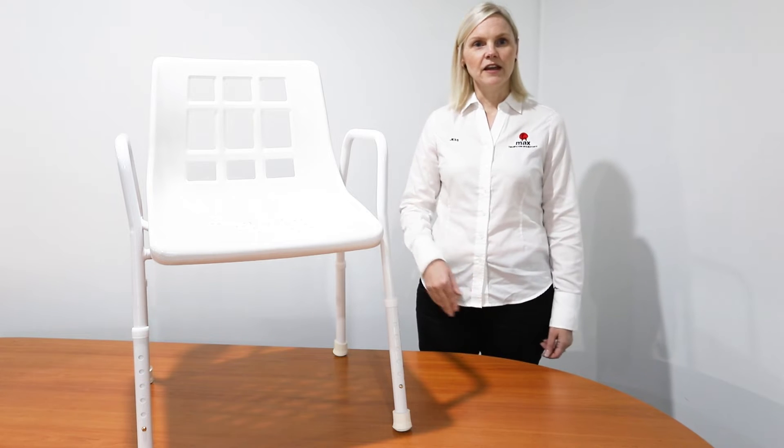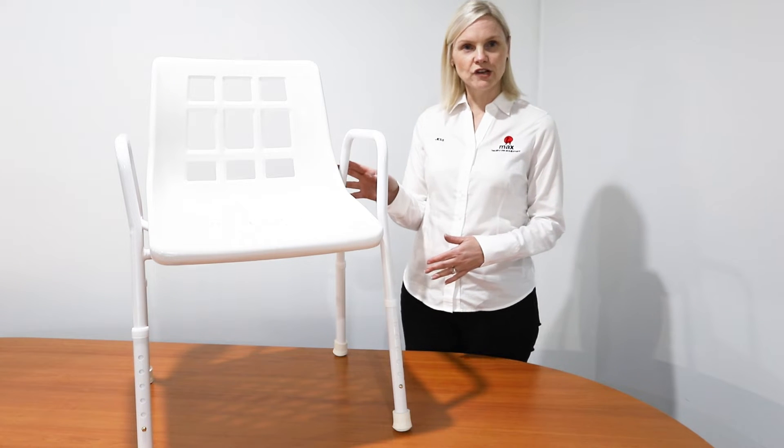Hi, I'm Jess, Occupational Therapist here at MAX. I have here a standard stainless steel shower chair.